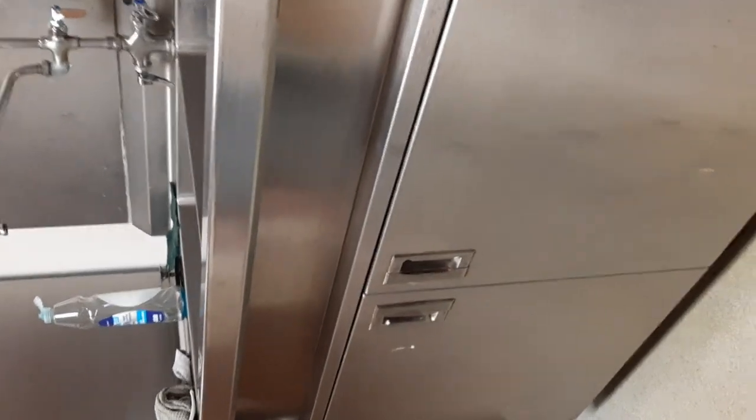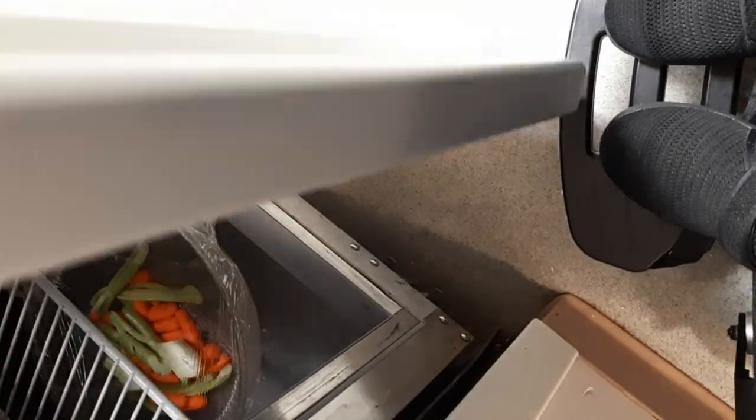This is a large industrial sink which I don't usually use, but for a regular sink you want to be side by side. Come in at an angle first, then turn yourself a little and now you're side by side. For the refrigerator, it's more complicated — you want to be at an angle away from the door so you can open it without getting it stuck on your footrest.